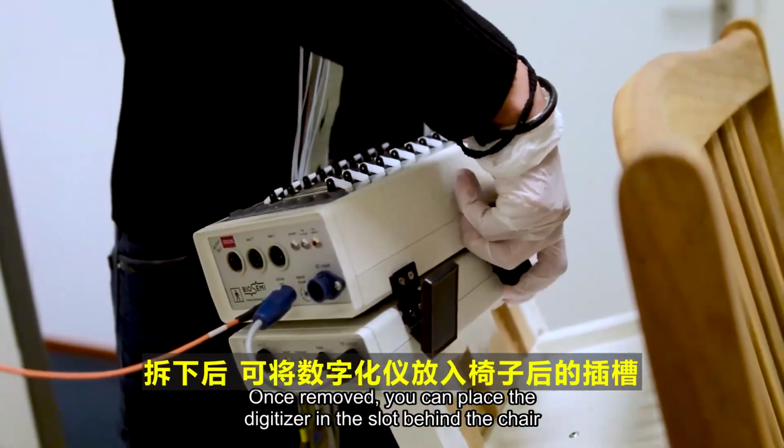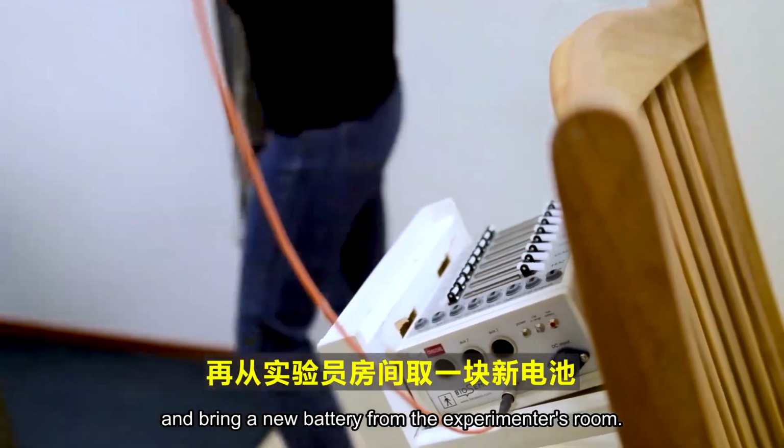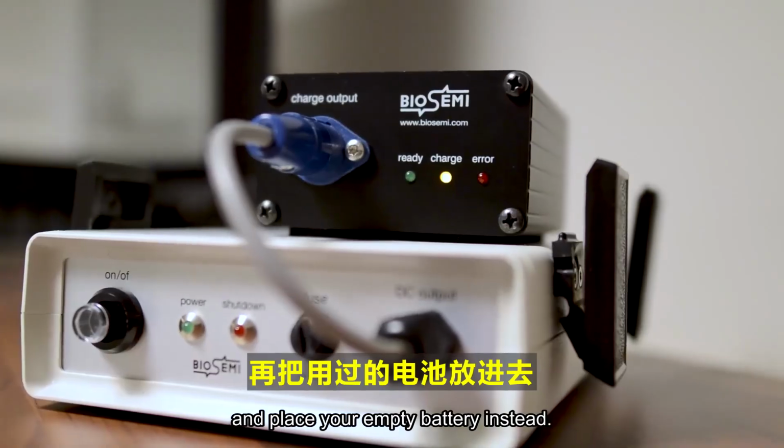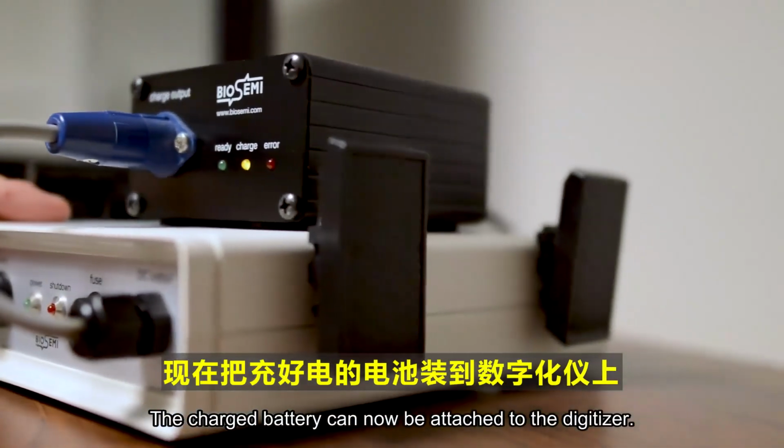Once removed, you can place the digitizer in the slot behind the chair and bring a new battery from the experimenter's room. Simply remove the battery that has been charging there and place your empty battery instead. The charged battery can now be attached to the digitizer.